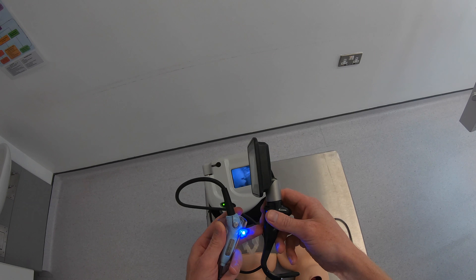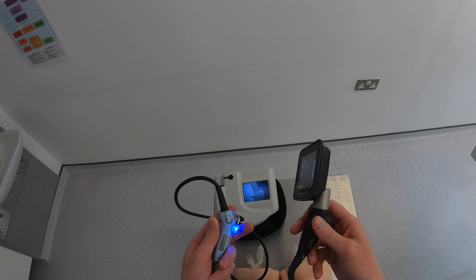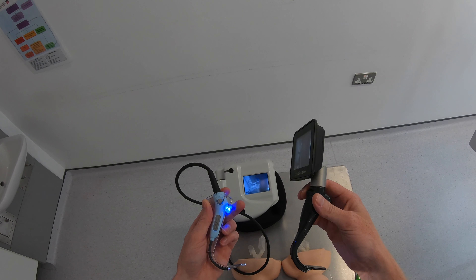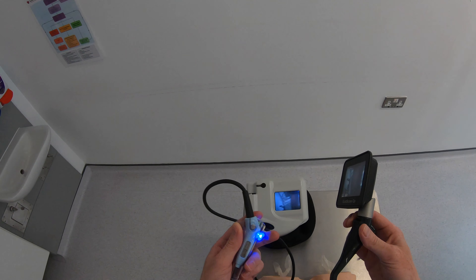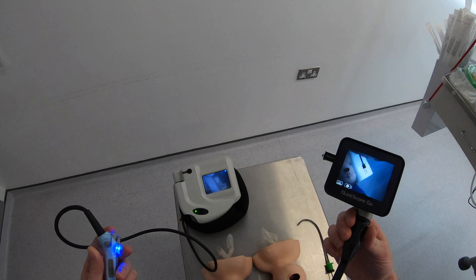Size-wise, the blades are actually fairly similar. There's not that much difference with the new titanium spectrum single-use blades compared to the old AVL system in these smaller neonatal sizes — these are both a size 2 blade. But certainly when you get up to the adult size 3 and size 4 blades, they are significantly thinner and offer a real advantage.